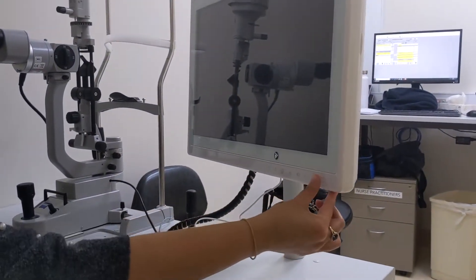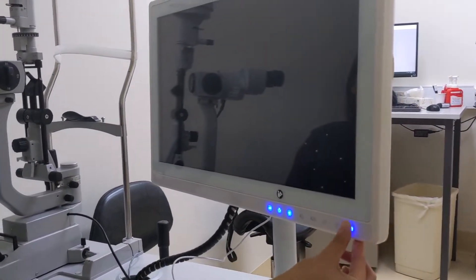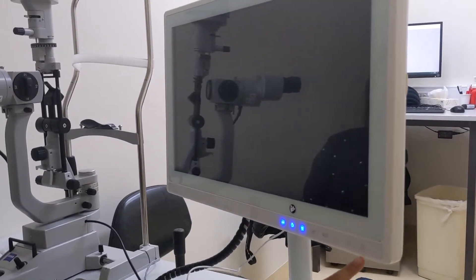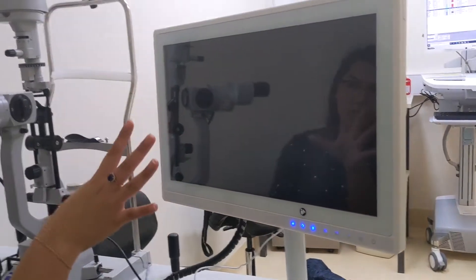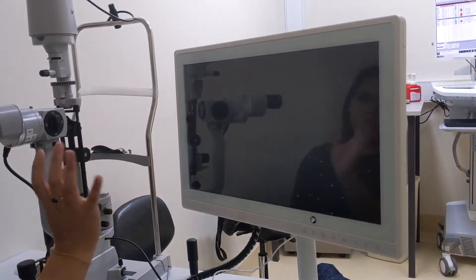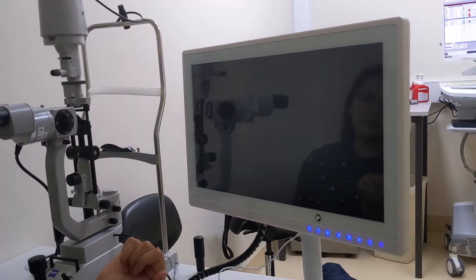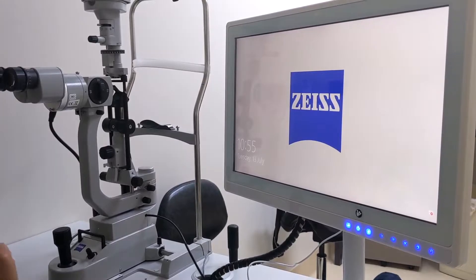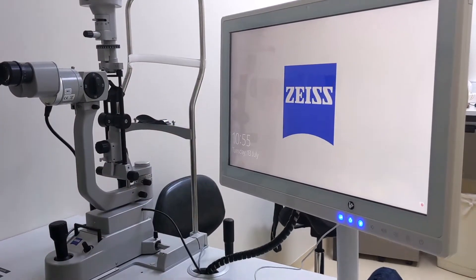With the little power button here on the right, once that's on, your blue lights will appear and the screen will take a couple of minutes to boot up, bringing you to the log-on screen.